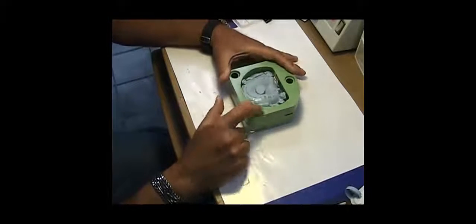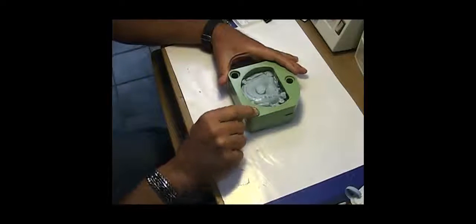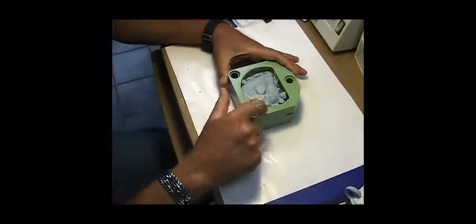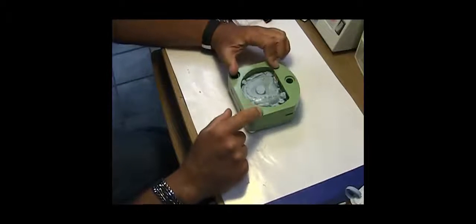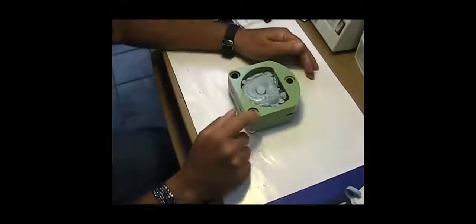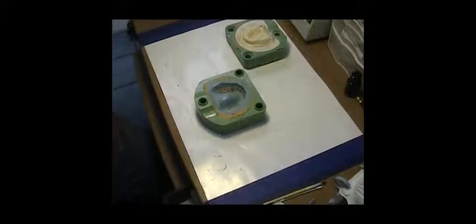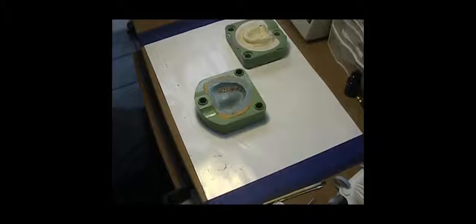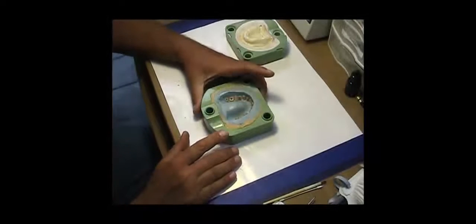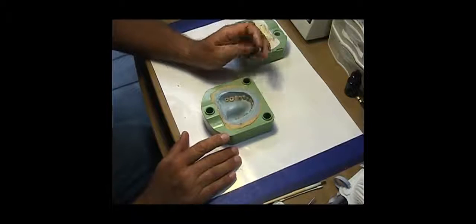The GC FRP flask - fiber reinforced plastic - that's the flask I like to use and it works like a charm. The next step is encasing your upper half of the flask in putty as I showed in the last video.